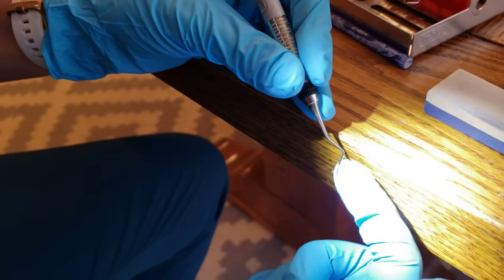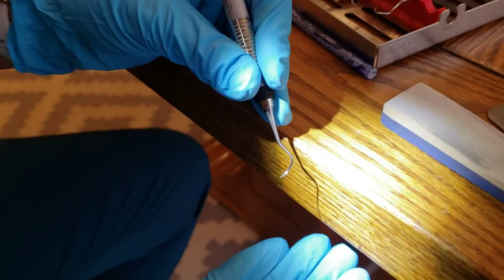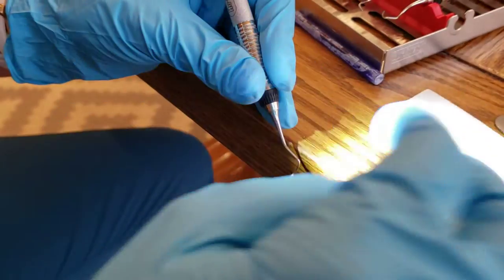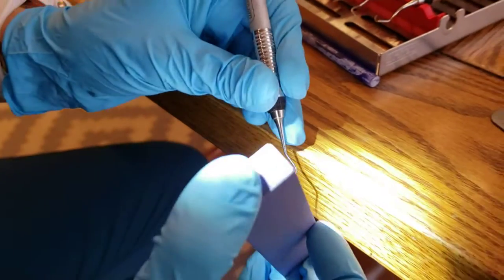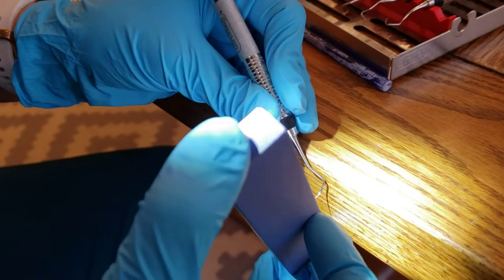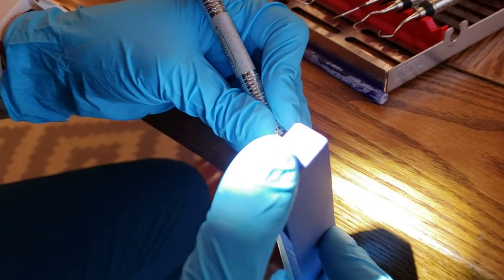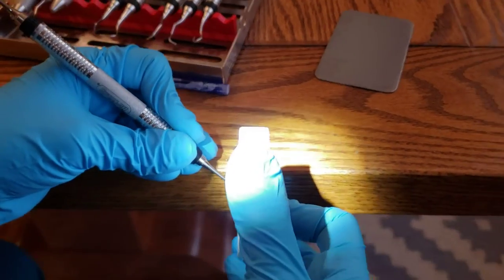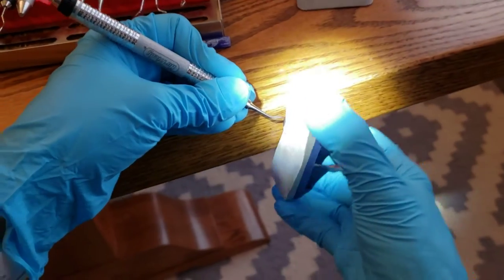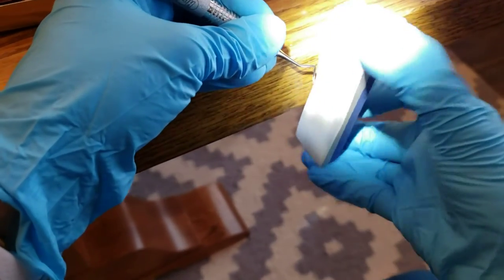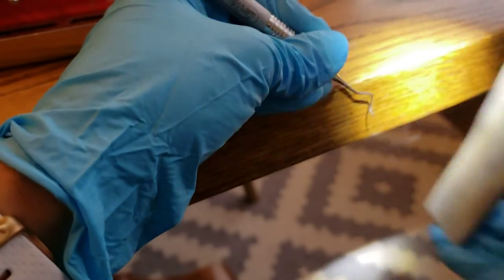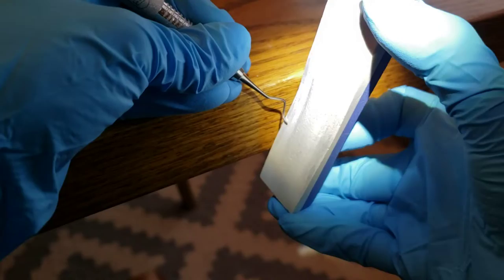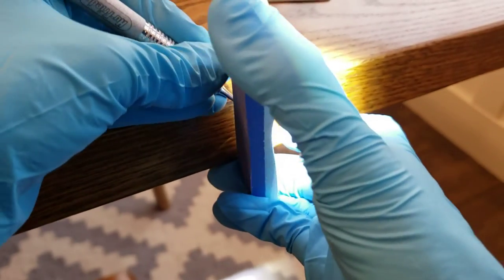So for this one, again, the terminal shank is going to be perpendicular to the floor. So you can see how I have to hold my hand offset. But I've got to keep that relationship to the blade. So I'm again going to go three minutes past 12. And you go from the back, the heel, all the way to the toe. You don't want to start midway or you're going to create a weak spot.